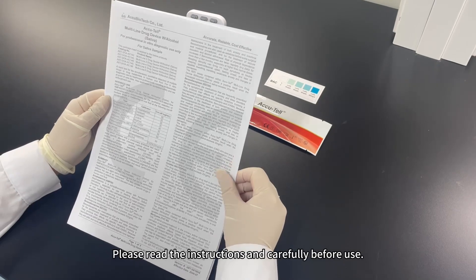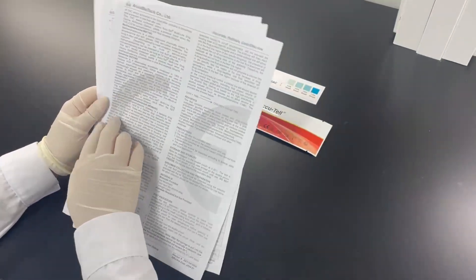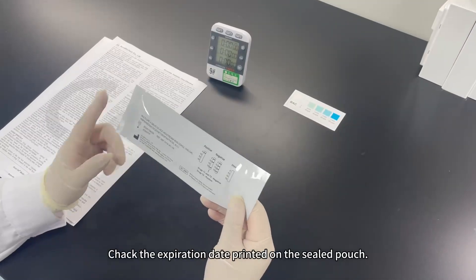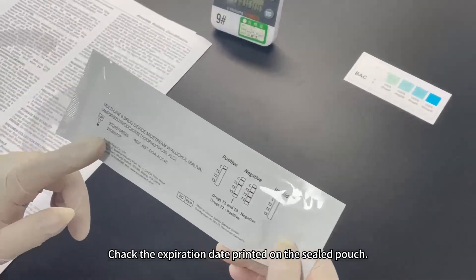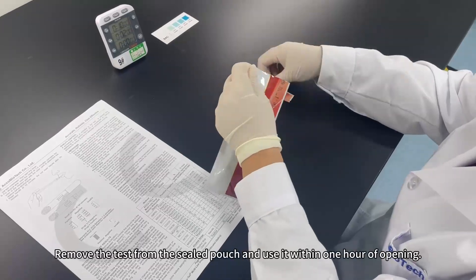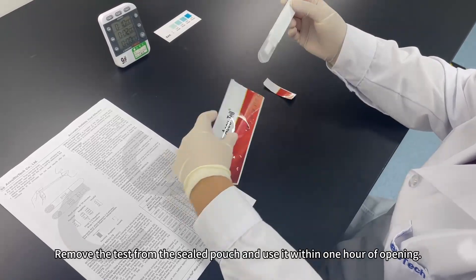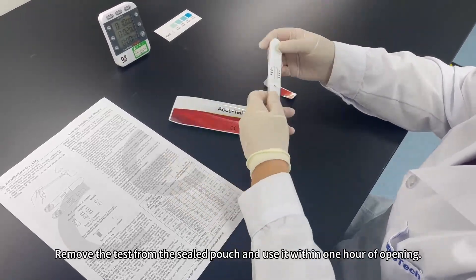Please read the instructions carefully before use. Check the expiration date printed on the sealed pouch. Remove the test from the sealed pouch and use it within one hour of opening.